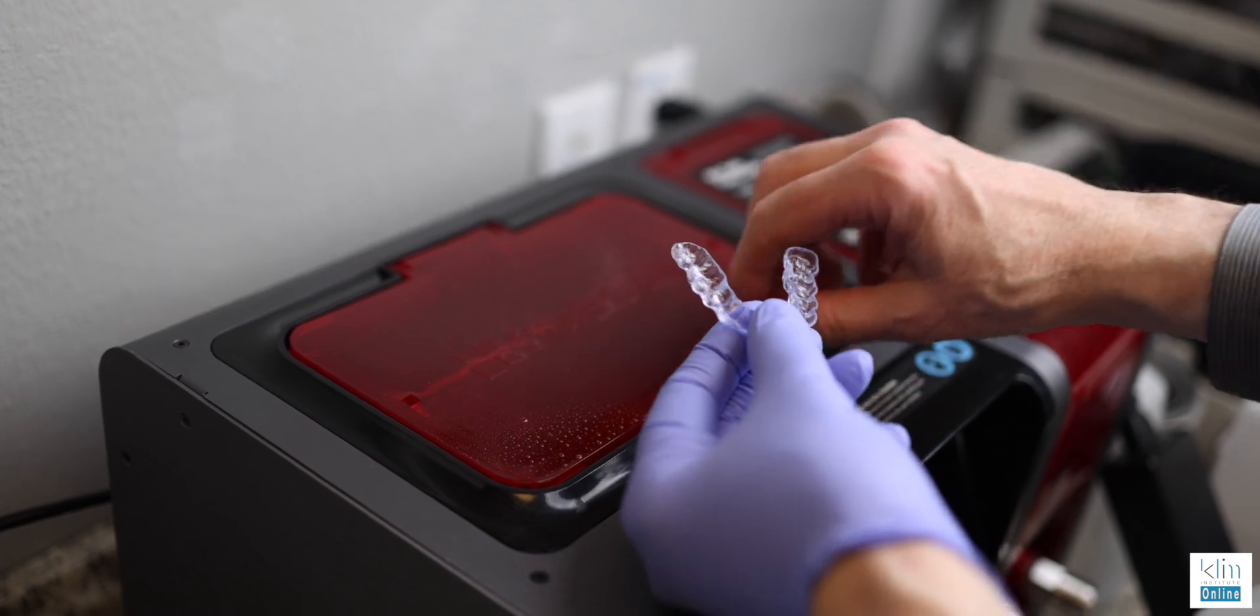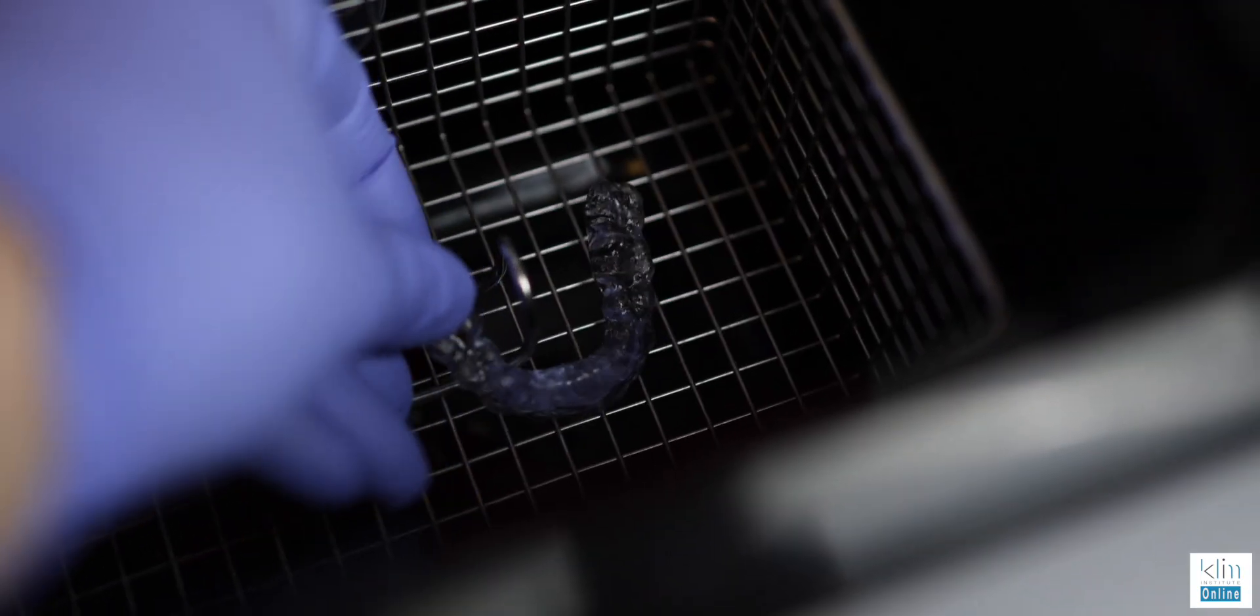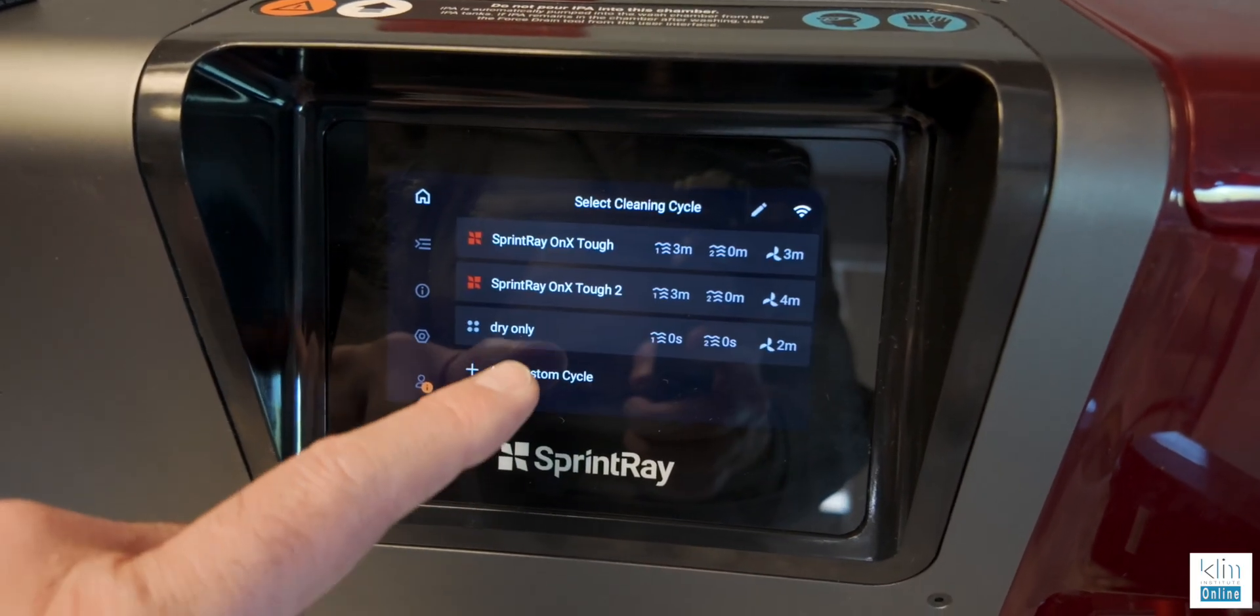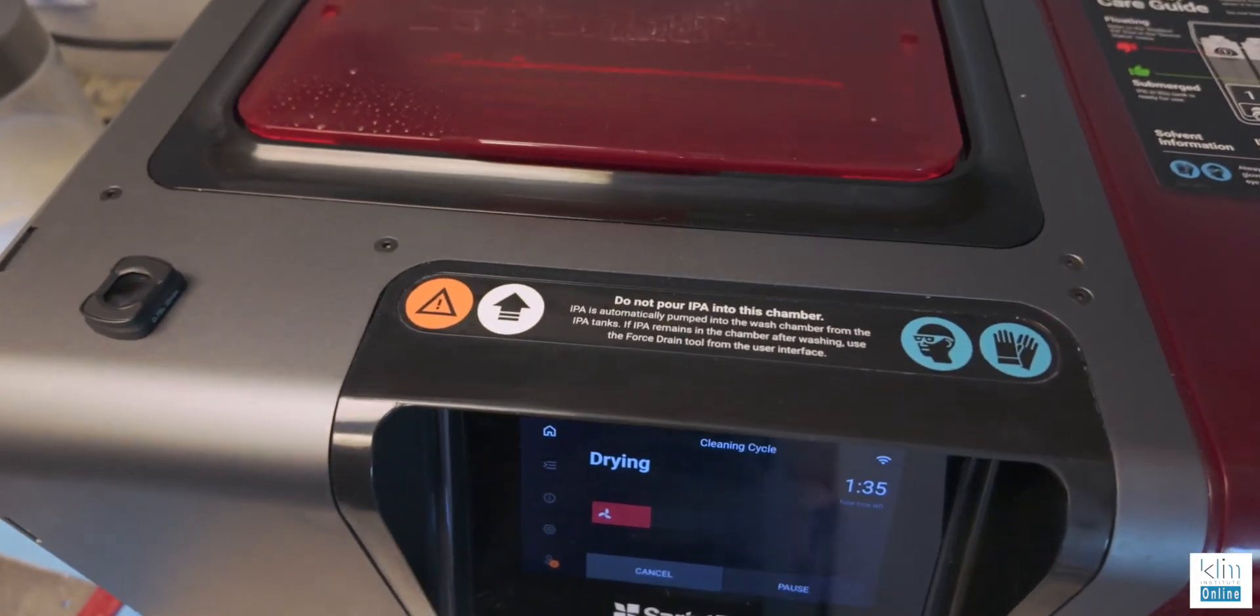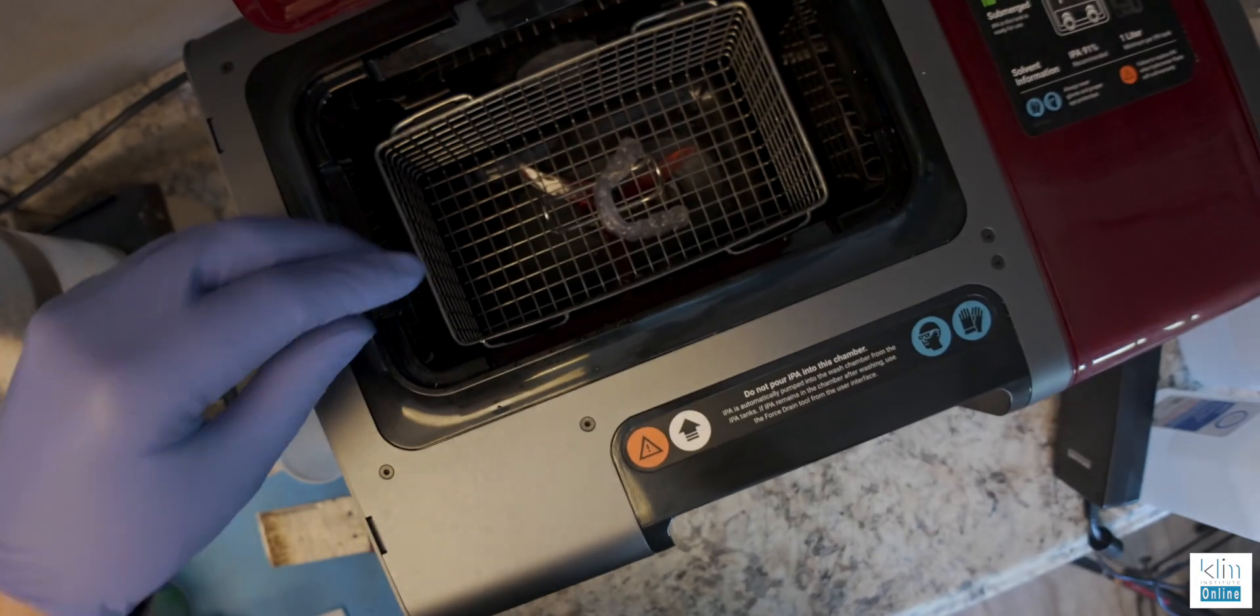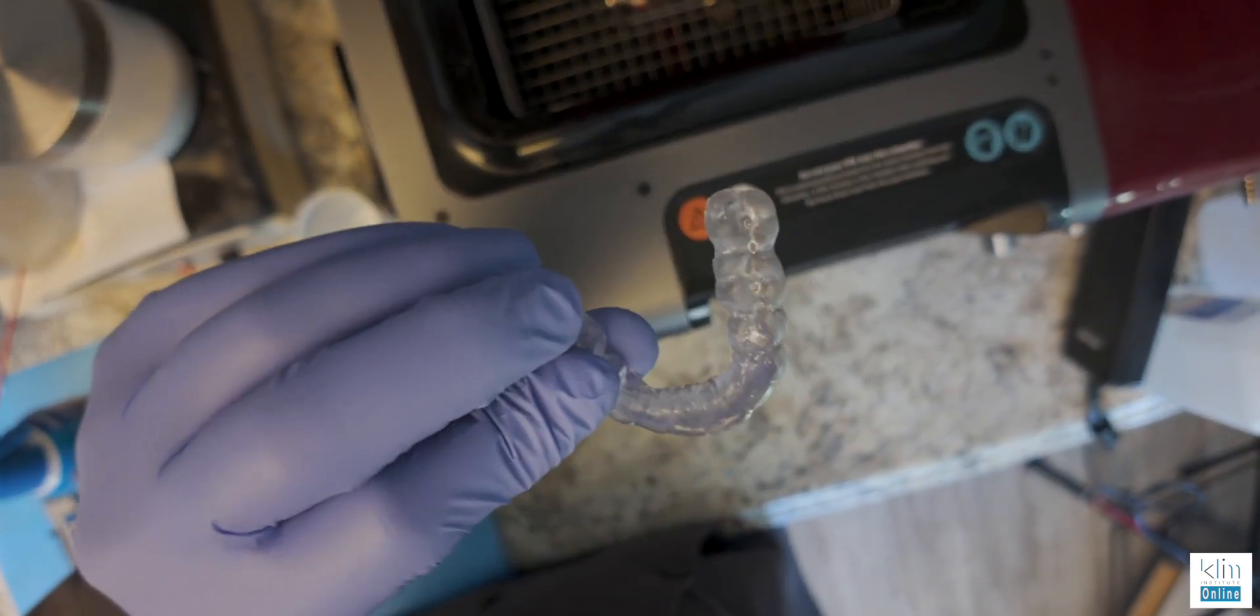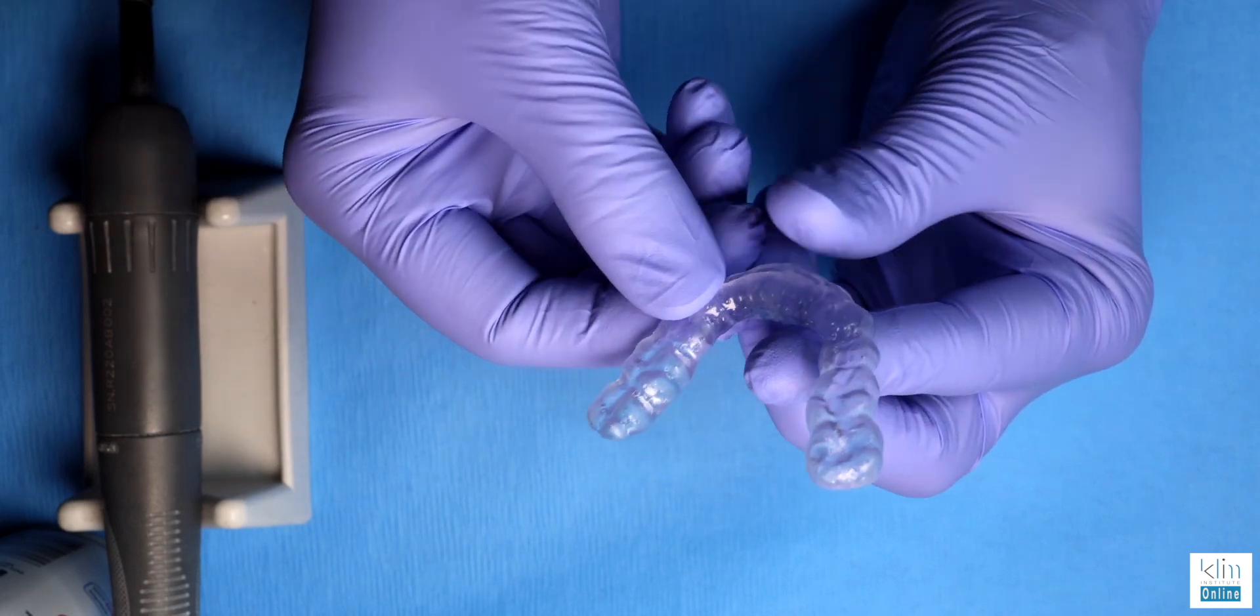Now here, if you wash it really well externally, all I do is dry. The other option is to go ahead and do the full wash and dry if the material needs more cleaning, and it's really proficient that way. So now we're ready to take it to our lab bench and move forward with the next steps.